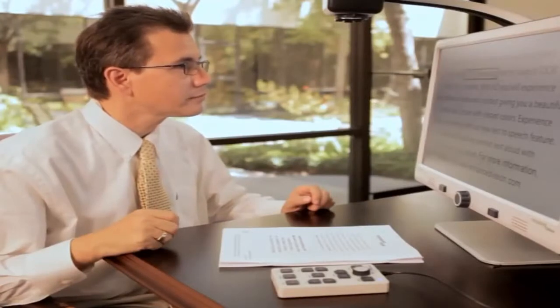Video magnifier, CCTV, featuring text-to-speech, OCR, and a three-in-one camera.